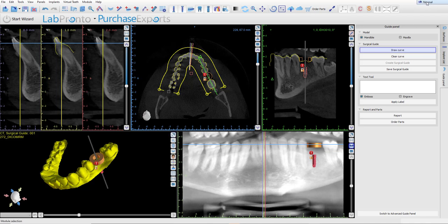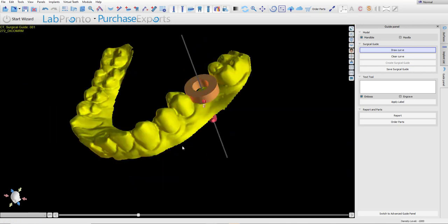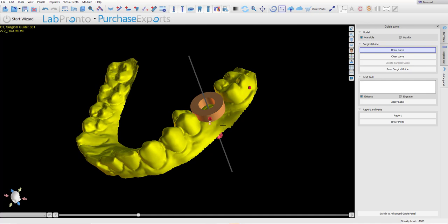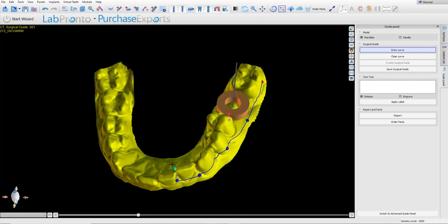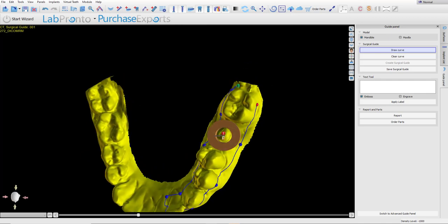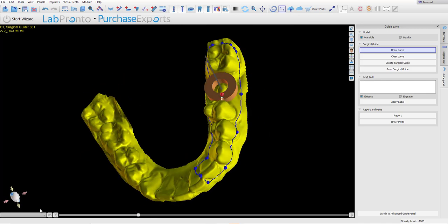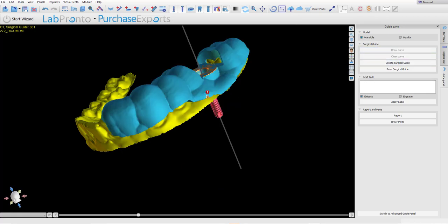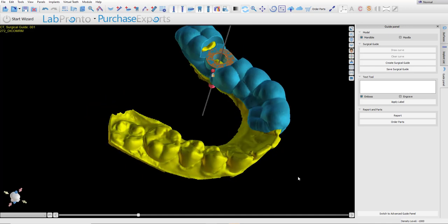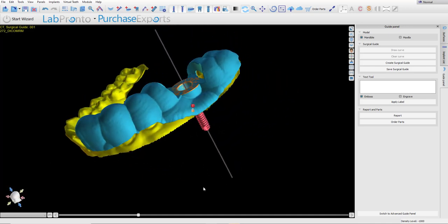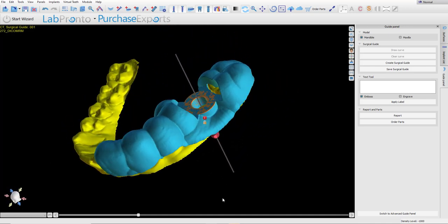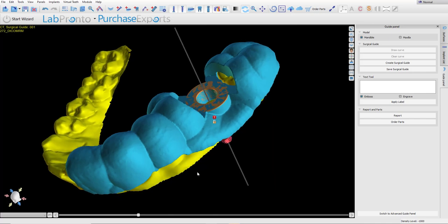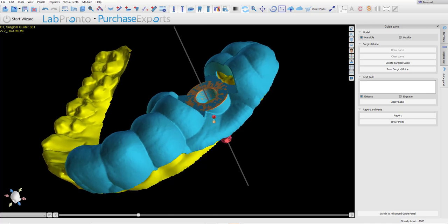In normal mode, we could see guide panel, draw curve. I'm going to enlarge my 3D view and draw surgical guide curve. Click Create surgical guide. And once again, we now have our surgical guide on our original model with undercuts automatically removed.